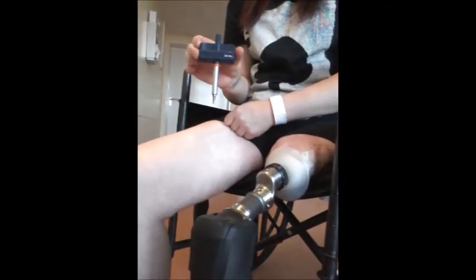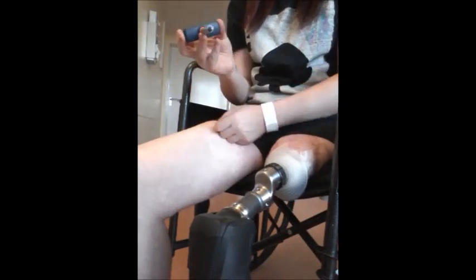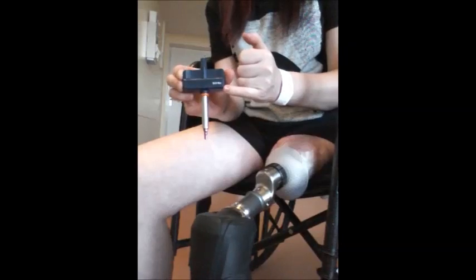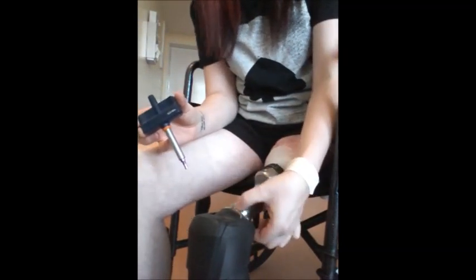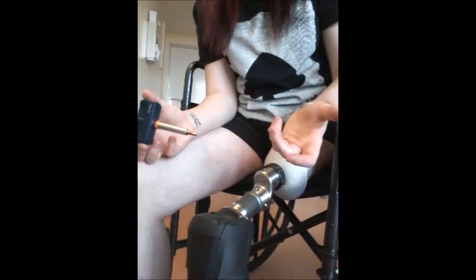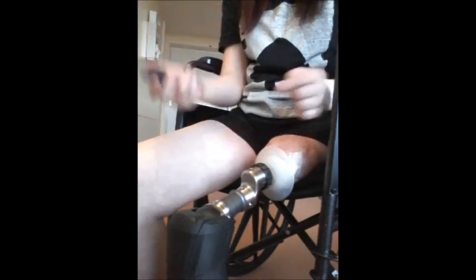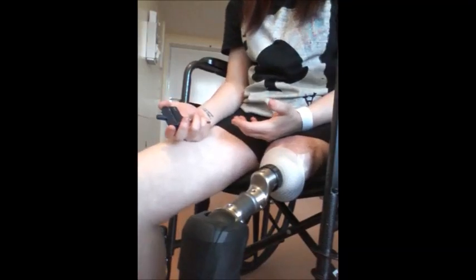You're given this little gadget, which is just an Allen key — it's magnetised. It's got five Newton metres on it, and these have different Newton torque settings. If you go over them, it'll snap. You're given this gadget to help you take this leg off, and this is how you would normally take the leg on and off now, forever.